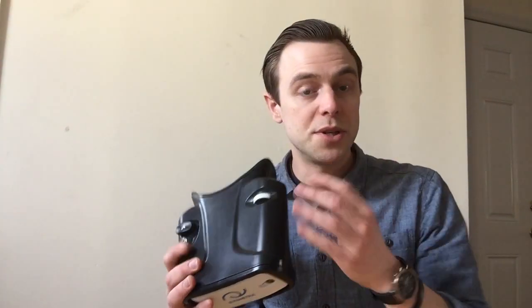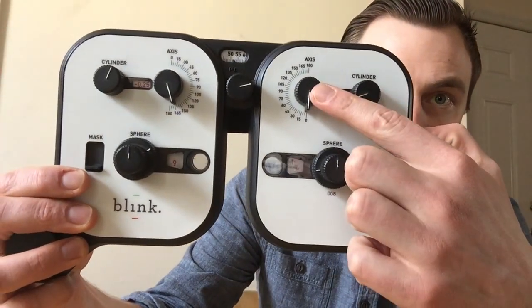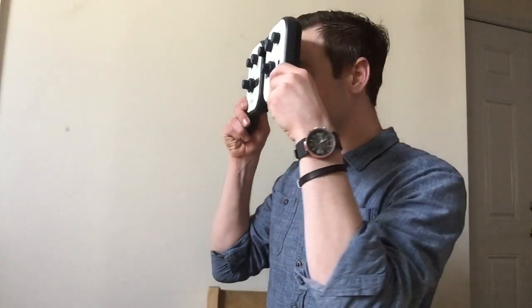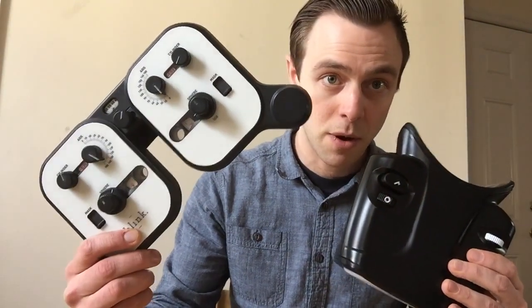After you have the initial baseline measurement derived from the Netra autorefractor, you plug that measurement into the ultra-portable handheld foropter. This has controls for sphere, cylinder, and axis, occlusion capabilities, as well as adjustments for PD. The main difference from a standard foropter is that there is no swing arm or specialized furniture required. The patient holds up the foropter, looks at an eye chart, and the eye care professional tweaks the measurements until arriving at a comfortable prescription. So you have refraction and refinement all right here.